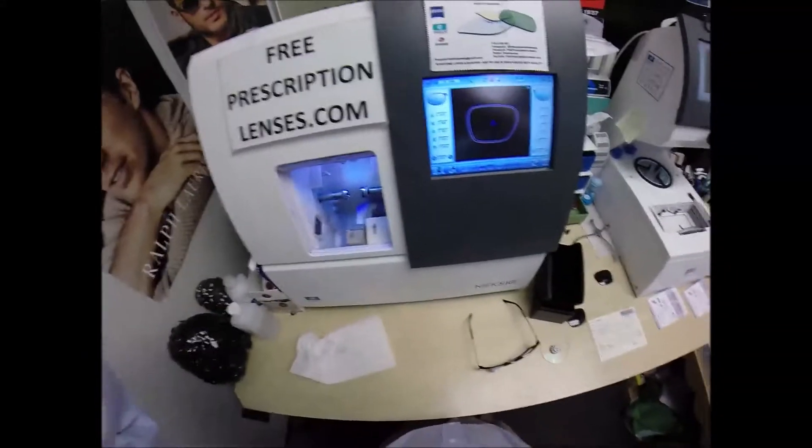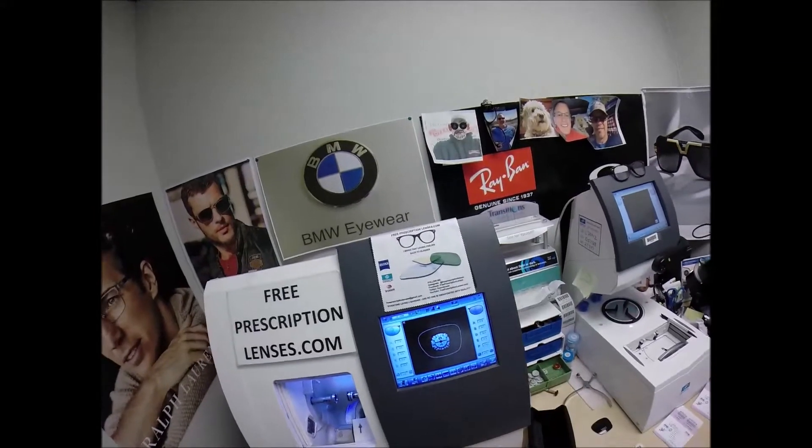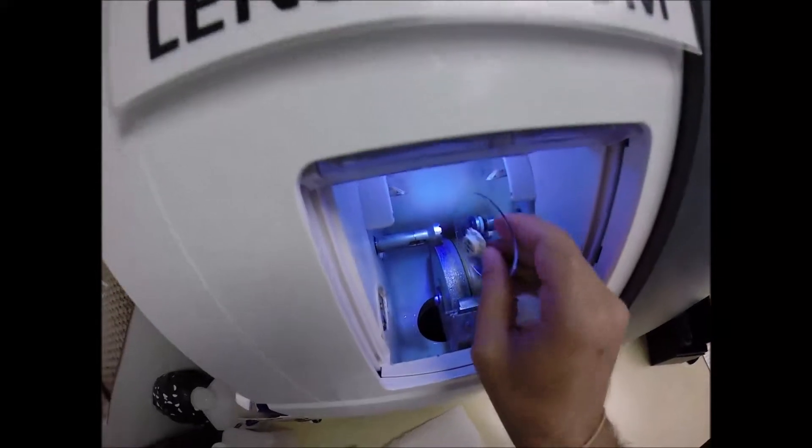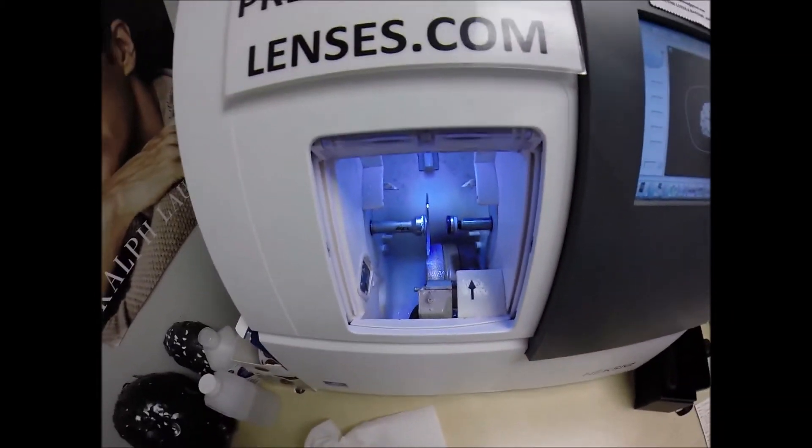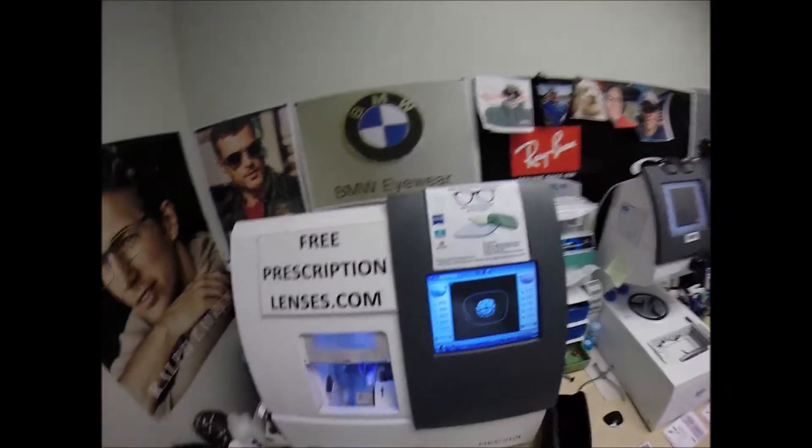Let me see if I can fix this camera. That's what I get for taking off in the middle of the shoot. Let's flip that over to L. Place the magnet into the Chuck, the Charles, the Chucky Baby, or today I'm calling it the Thomas. Hit the green start button.